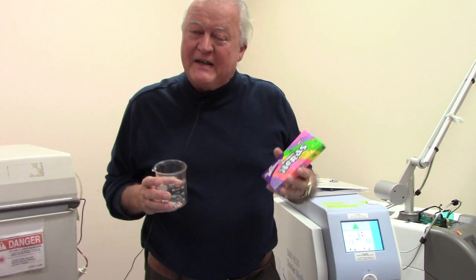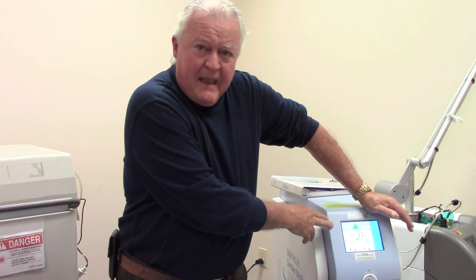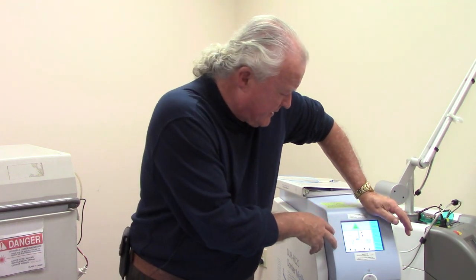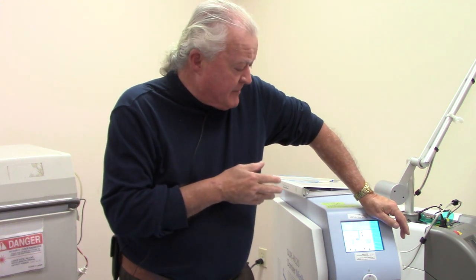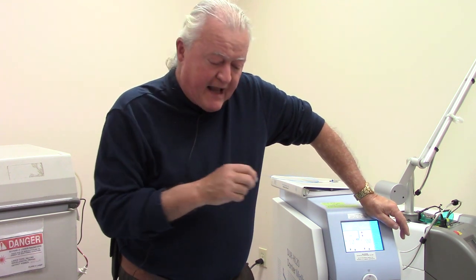We're going to have a little bit of fun now playing with some hard candy, pretending they're kidney stones and breaking them up. I have some Nerds candy here — maybe that name is appropriate, since they think us working in the laser labs are technical nerds. The laser is right now set at 1.2 joules, 10 times per second for an average power of 12 watts. In terms of stones, there are two ways to do it. This way is more of a fragmentation of the stone itself — it actually breaks apart the stone. It's not the power that does it, it's the energy per pulse.